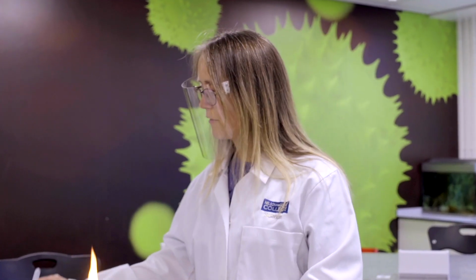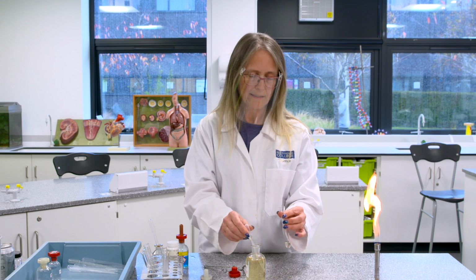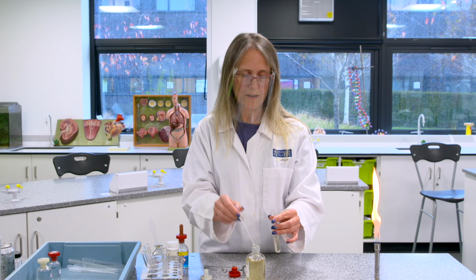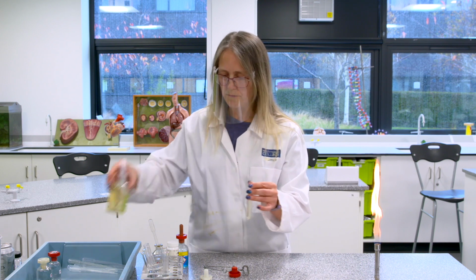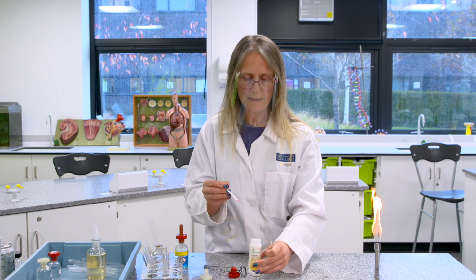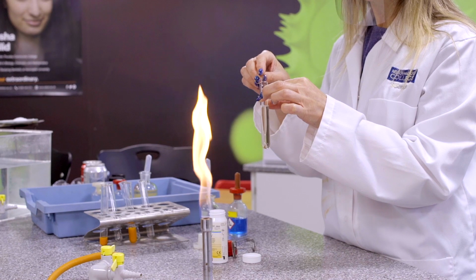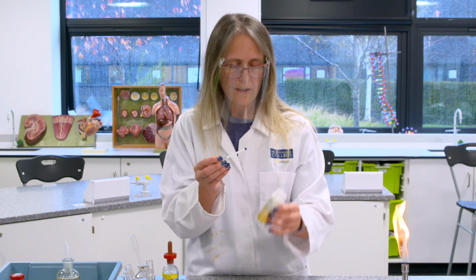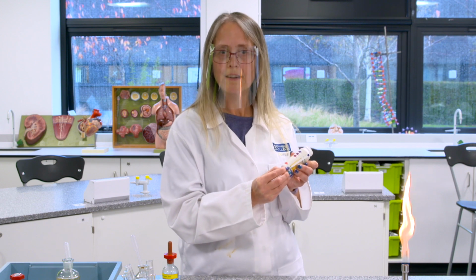So quite a difficult task really, and that's made a lot easier these days, because now we have an alternative to the Benedict's test, which is what midwives and doctors would more commonly use now to test a sample of urine for sugar. So if we just put plenty of this in here. There we go. And we have these little sticks called Clinistix. And these are a really simple way of just testing the urine sample for sugar. So they've got a little pink box on the end, and I'm just going to dip that in, leave it in there for a short time, and we have a colour change. It's gone purple, and that shows you that there is sugar in the urine. It's a much quicker, easier way of testing the urine for sugar.